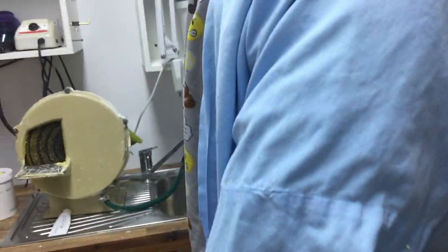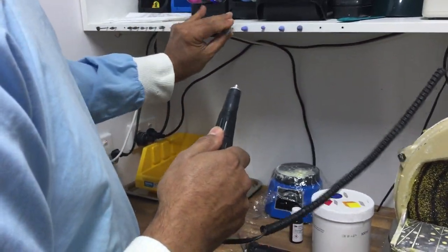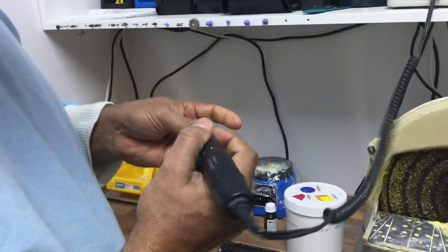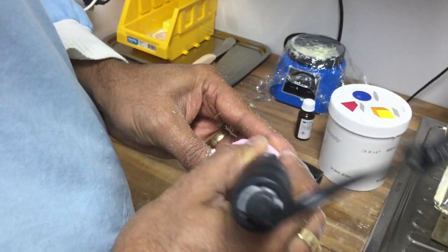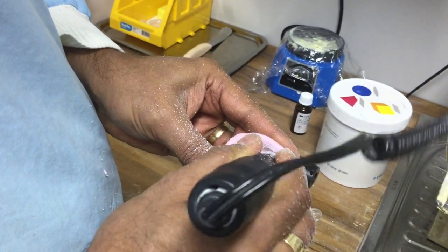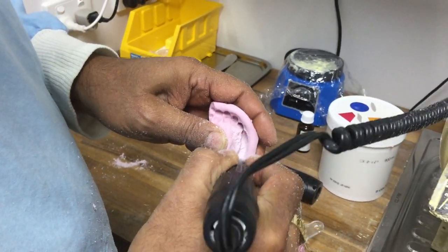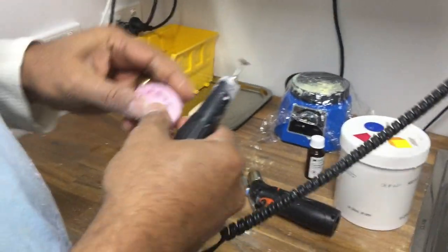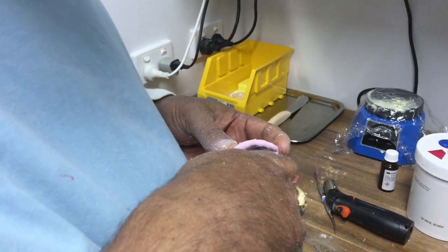Once it's set, here's one I've done before — it comes out something like that. I grab my lab handpiece and an inverted cone burr. If I hadn't used relief on the model, I go into the tray and clean it out all the way around. That's where the wash material is going to go — make sure you get right up to the gingiva. Then I get a little wheel saw and score the inside with small lines.